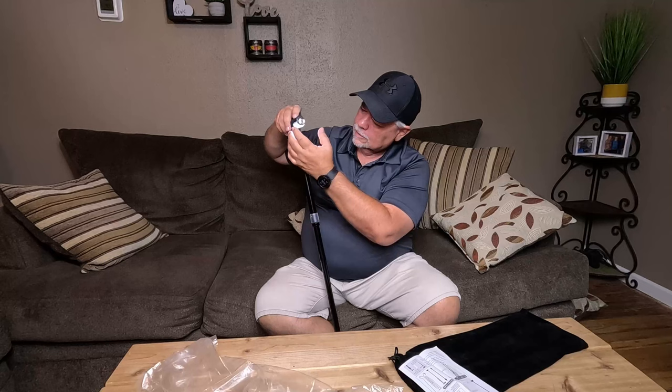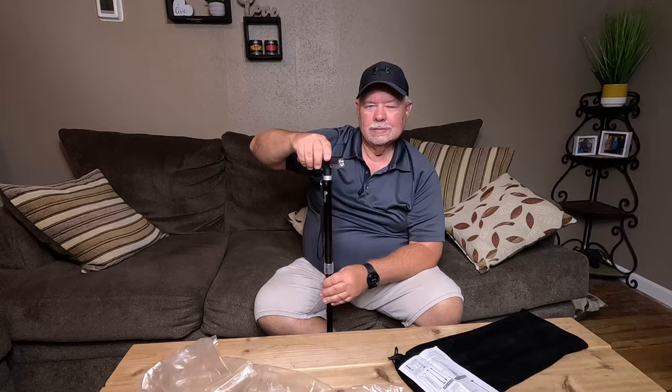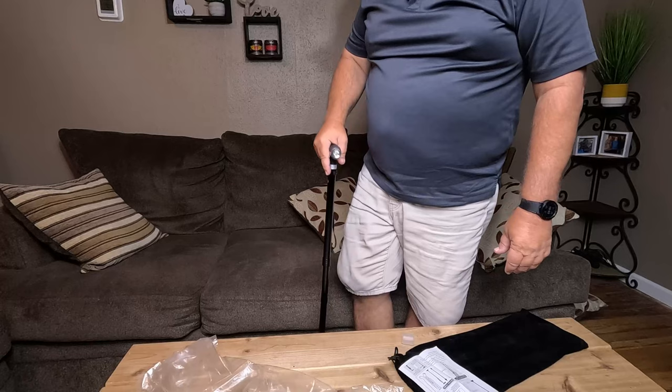Oh, a headlight and a floodlight — I didn't notice that a while ago. And then off. Let's go check it out and see how bright it really is. Actually, that kind of helped getting up.